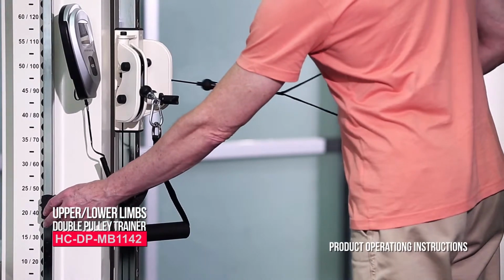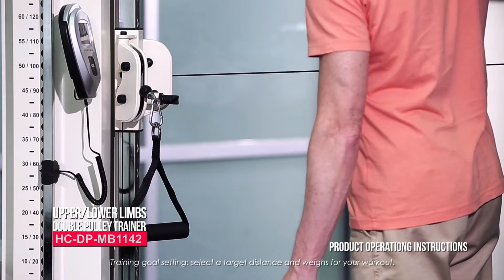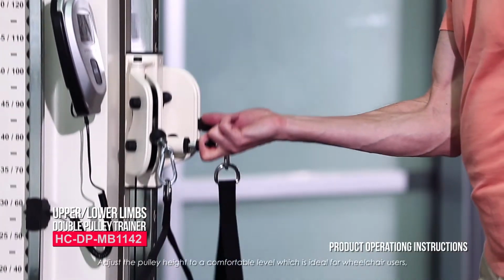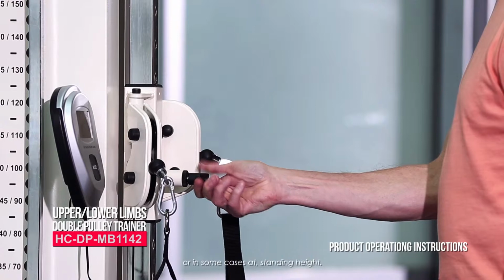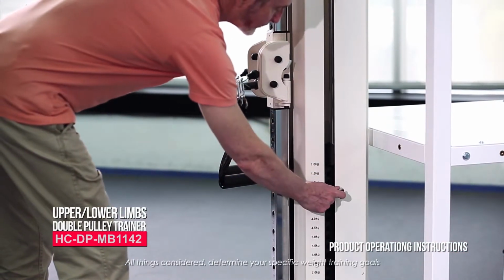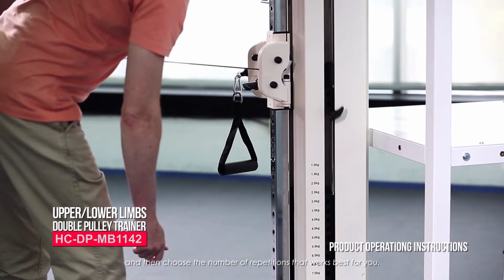Product operating instructions. Training goal setting. Select a target distance and weights for your workout. Adjust the pulley height to a comfortable level, which is ideal for wheelchair users or, in some cases, at standing height. All things considered, determine your specific weight training goals and then choose the number of repetitions that works best for you.